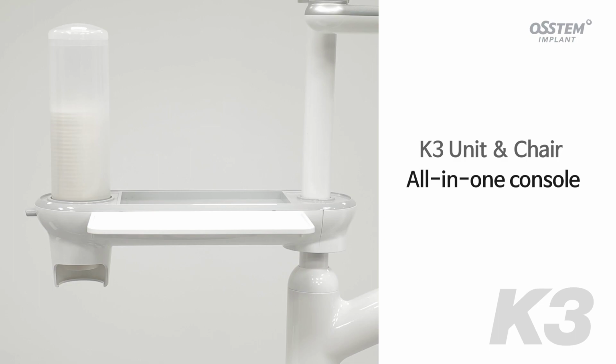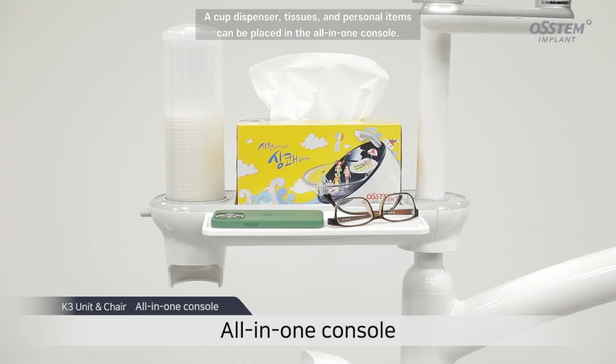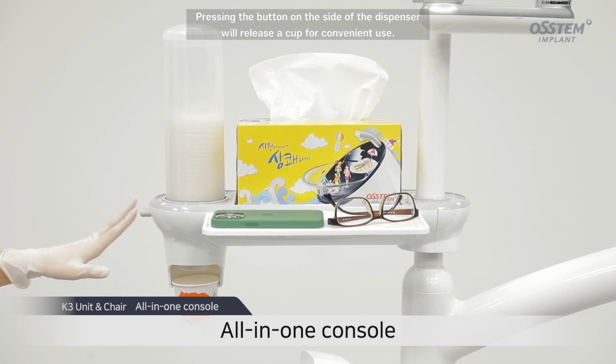All-in-one console. A cup dispenser, tissues, and personal items can be placed in the all-in-one console. Pressing the button on the side of the dispenser will release a cup for convenient use.